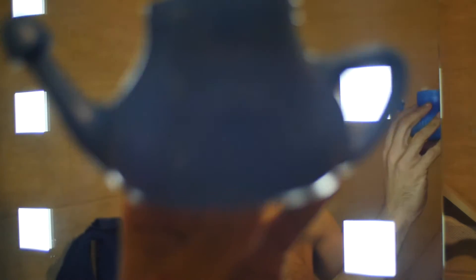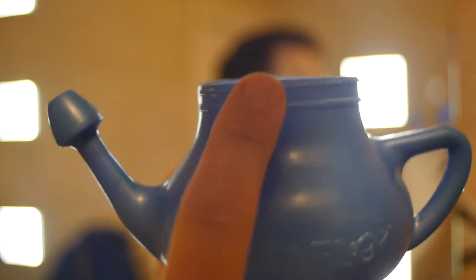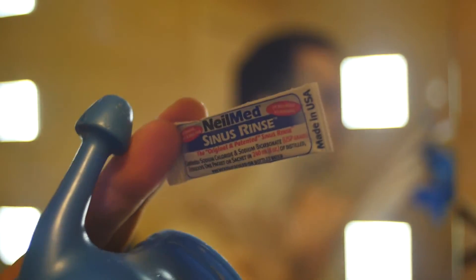What I've got is this thing here, and this is a neti pot. I don't know if you've seen one of these — I can show you close up here. It's actually like a little wee pot, a wee little kiddies toy, and it comes with a lid, but that's become lost because my kids basically play around with this. I'll just show you what you do with it, it's quite simple.